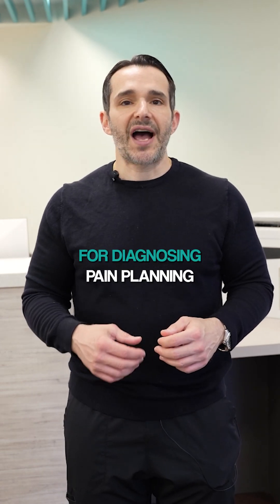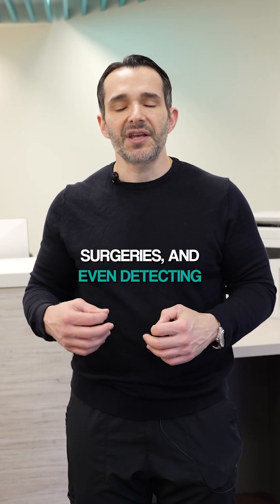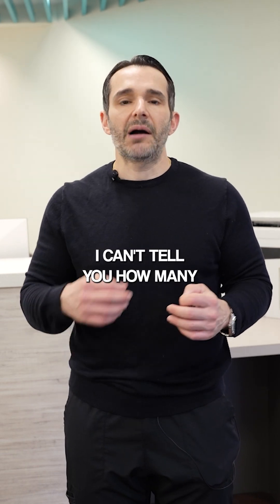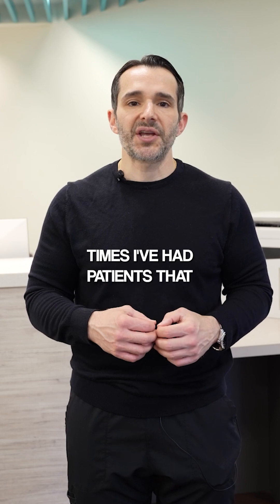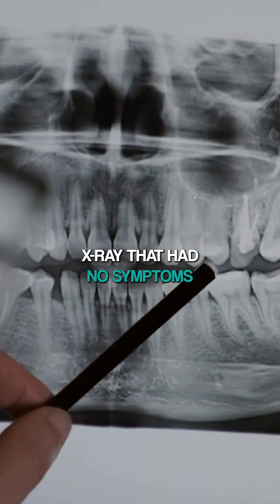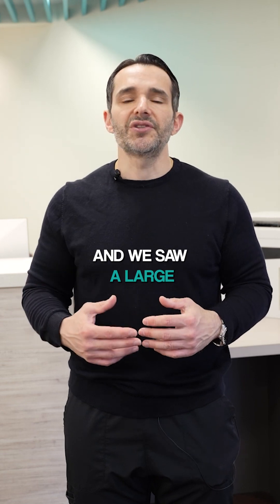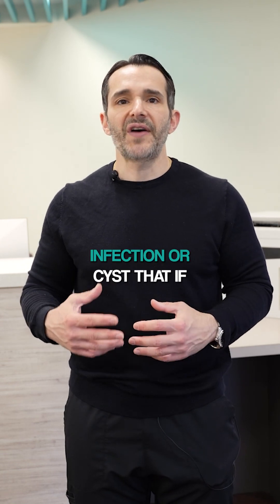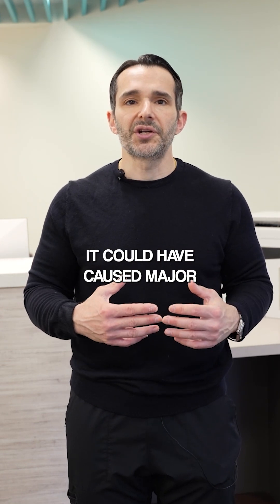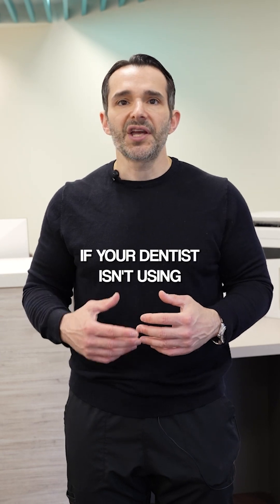But we also use it for diagnosing pain, planning surgeries, and even detecting issues before they cause symptoms. I can't tell you how many times I've had patients where a two-dimensional x-ray showed no symptoms, and for whatever reason we took a 3D CBCT and found a large infection or cyst that, if it had not been removed, could have caused major damage or systemic health problems.